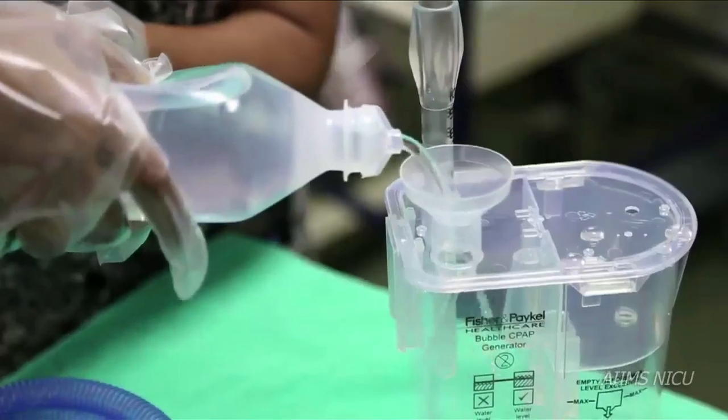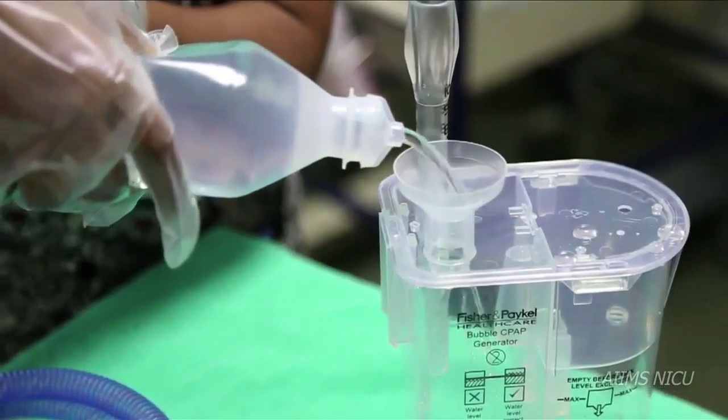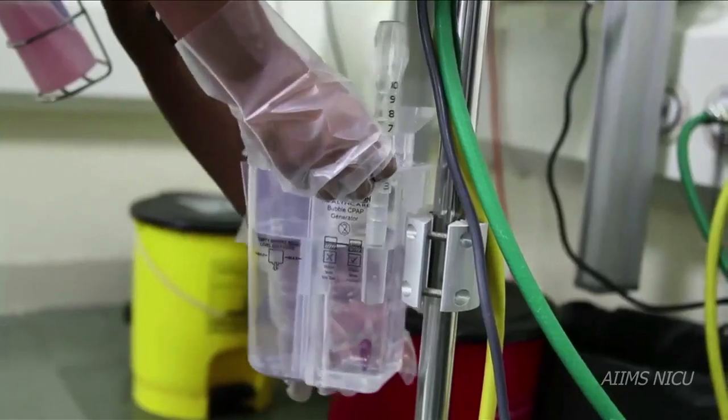Fill the bubble chamber with clean or distilled water and fix it to a slot available on the CPAP machine stand.